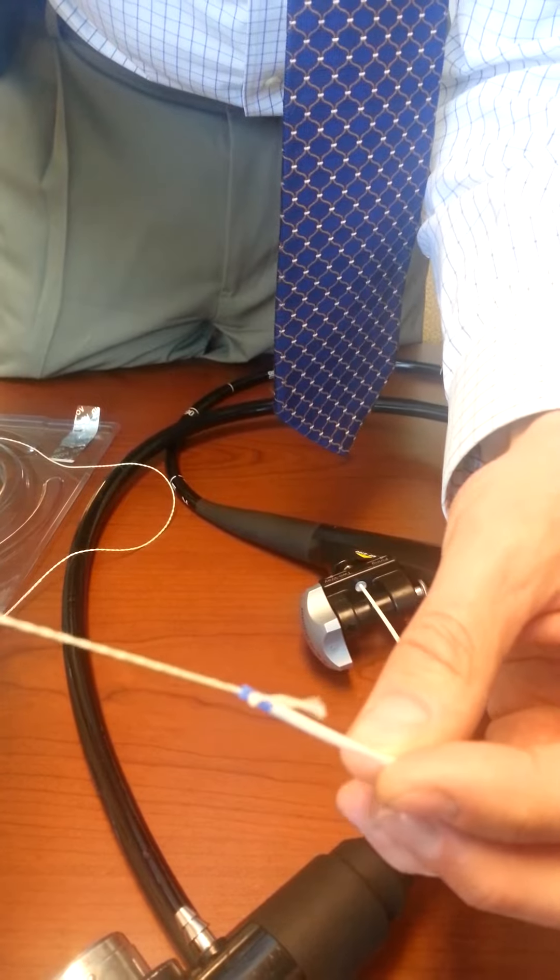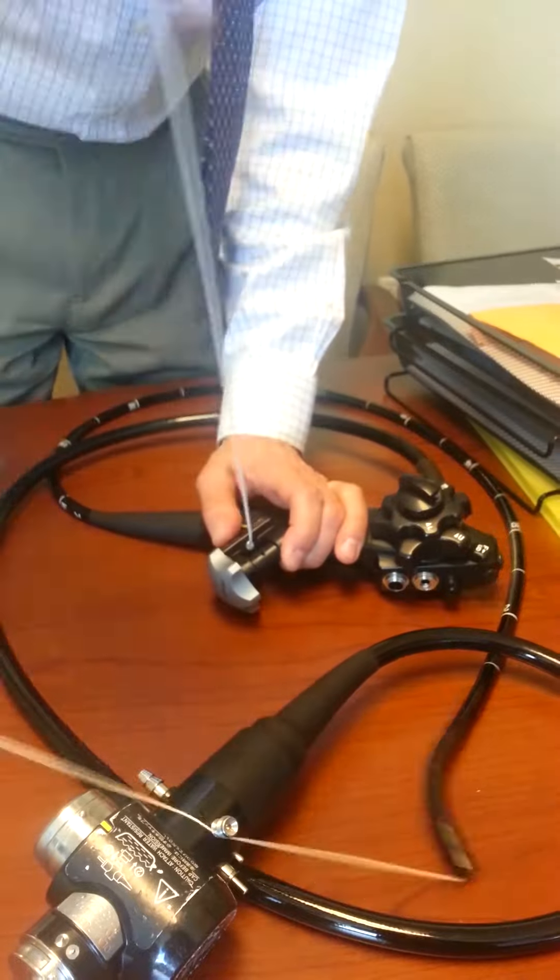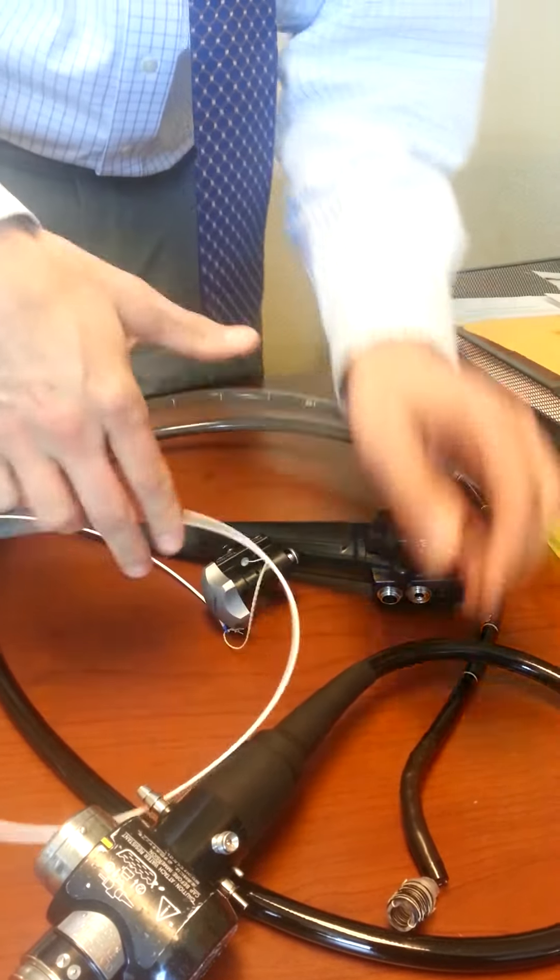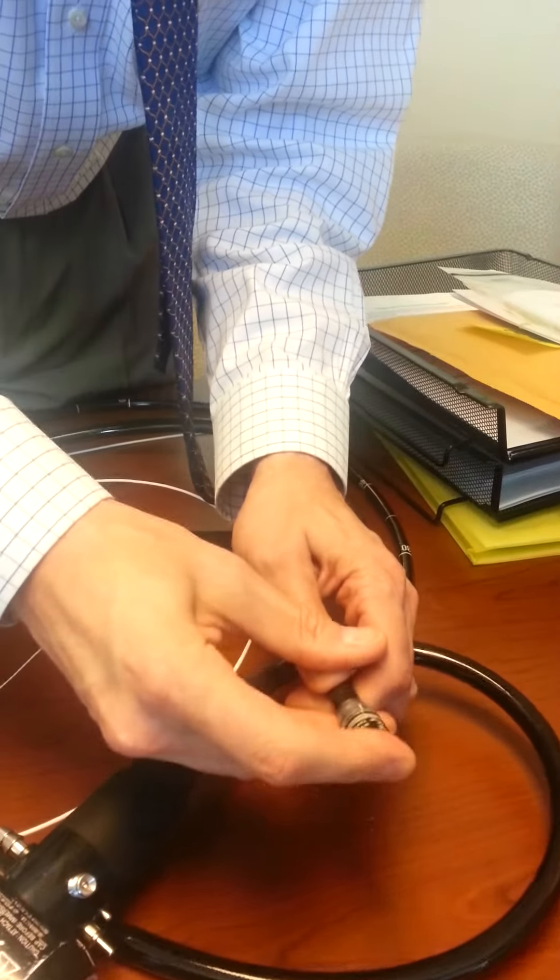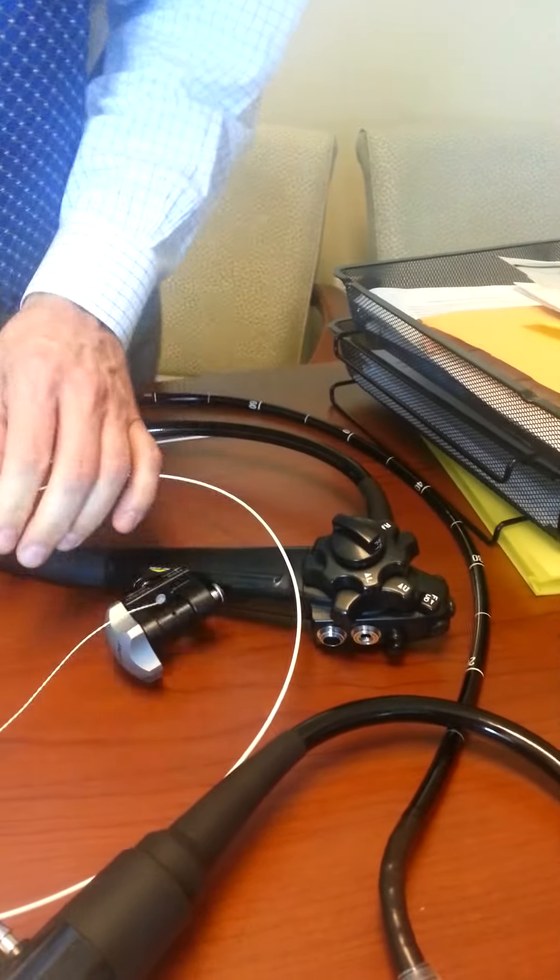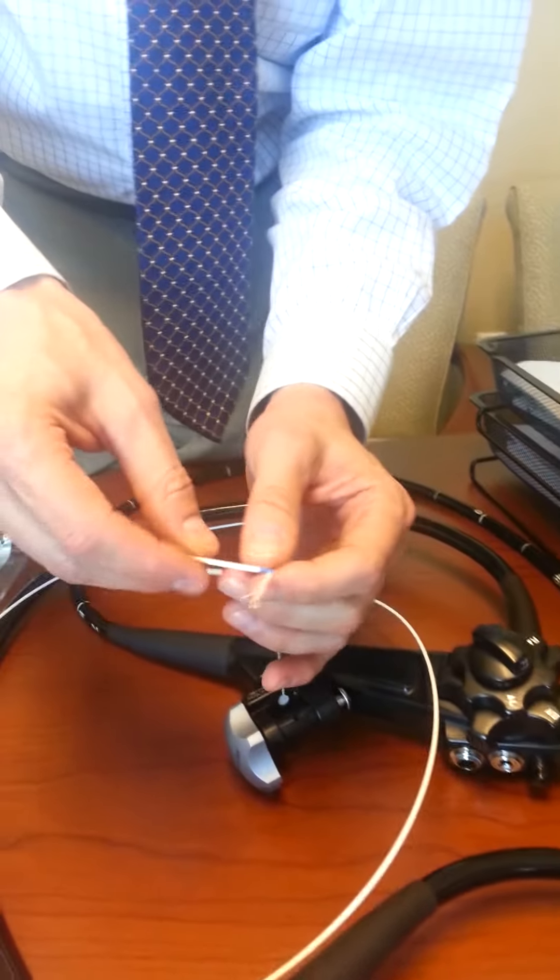Then that is pulled through the scope very simply and fixed on the end of the scope like we would any other bander.